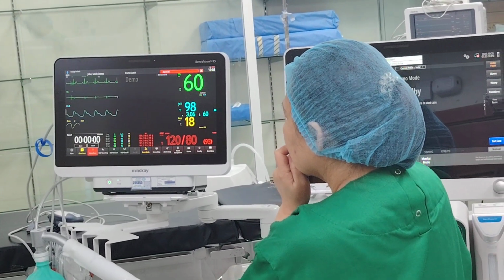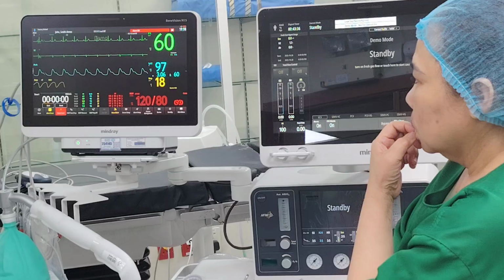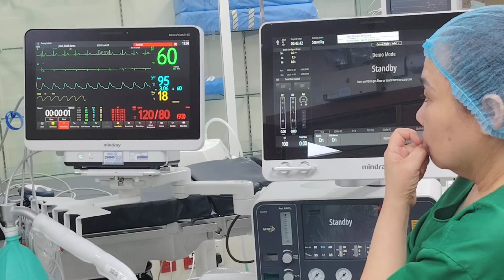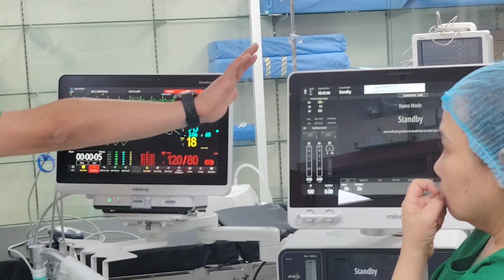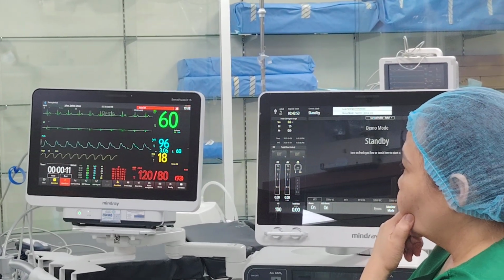One thing extra you will see is this turning red, and then you have a timer right here. When you put NMT, it will show here. You put BIS, it will come into this. How do you start the timer? Start here, and I really encourage you to use two different timers. You have a timer here, a timer there. One for the case, one for the neuromuscular, as you like.